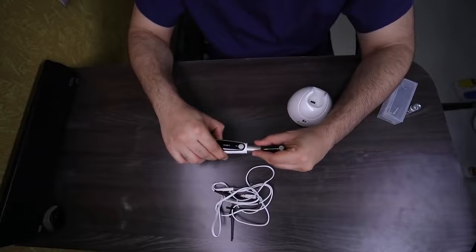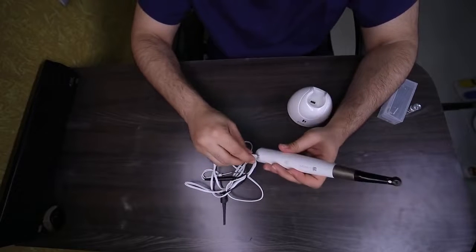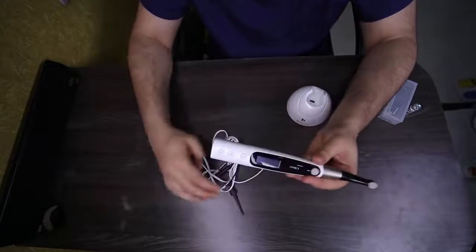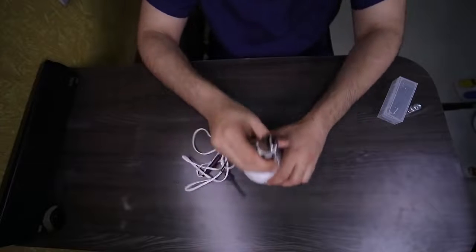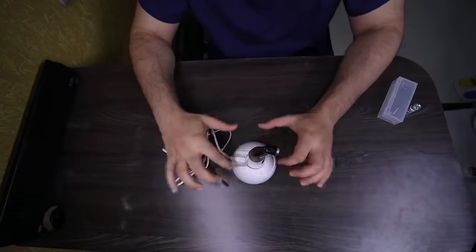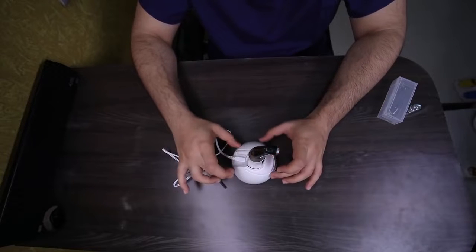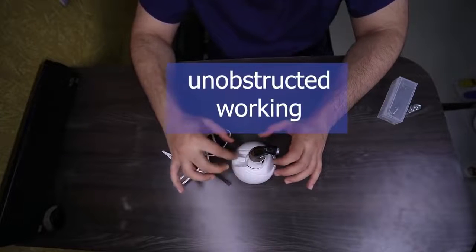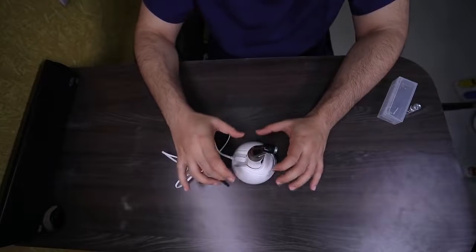It's a small snap — you fit it. The Apex Locator plug goes in over here. So yes, we have our machine which is assembled and ready to dock. The best part about this system and design is that at no point do you have to remove this plug. The docking machine and the charger are designed in such a way that the Apex Locator will never interfere while you're working or while it is at rest.